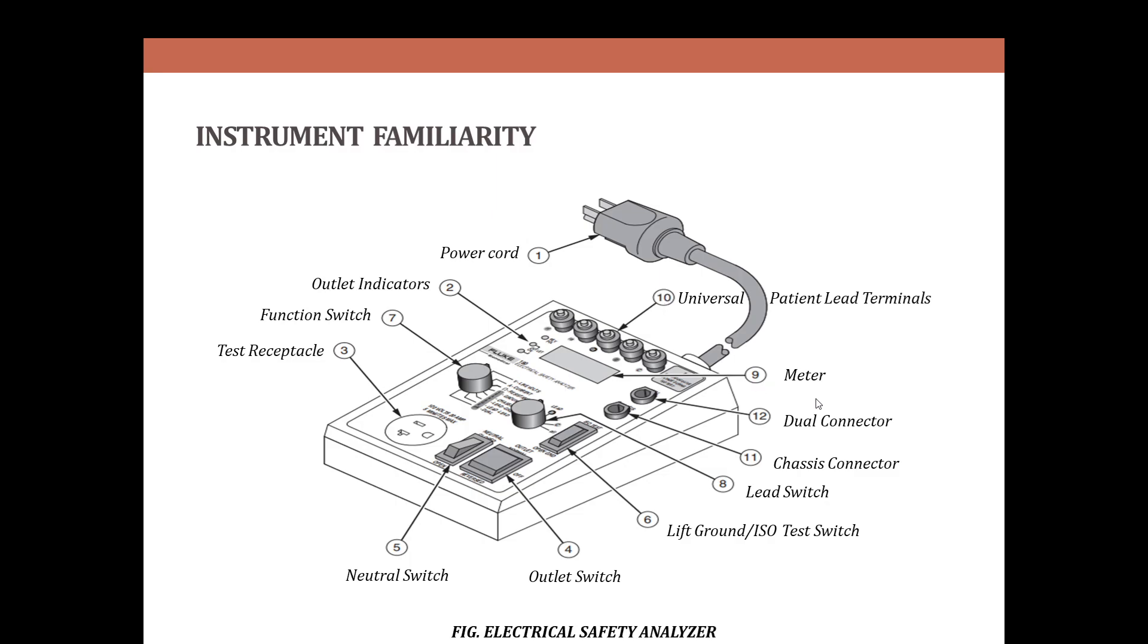This is measured with the function switch in the resistance position. The dual connector is used to make point-to-point measurements with optional leads available for purchase, and the meter shows the measurement in the digital display and universal patient lead terminals.